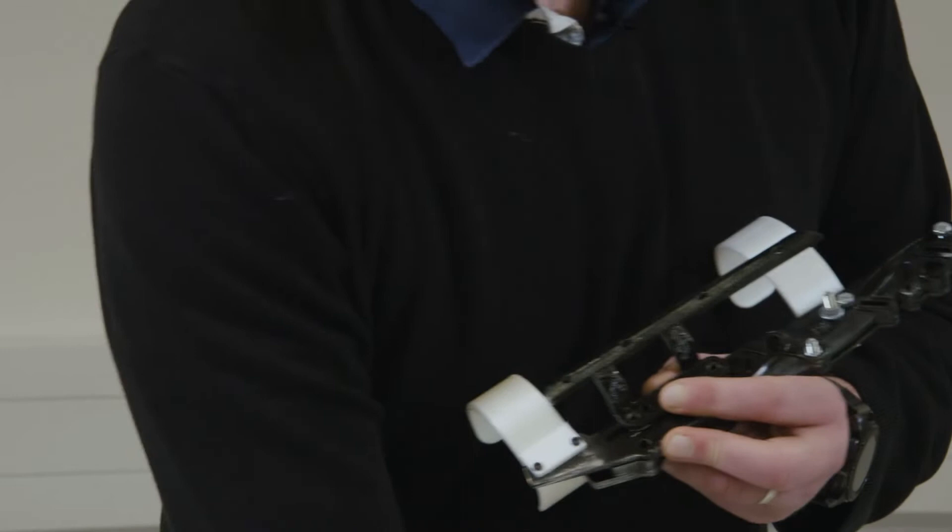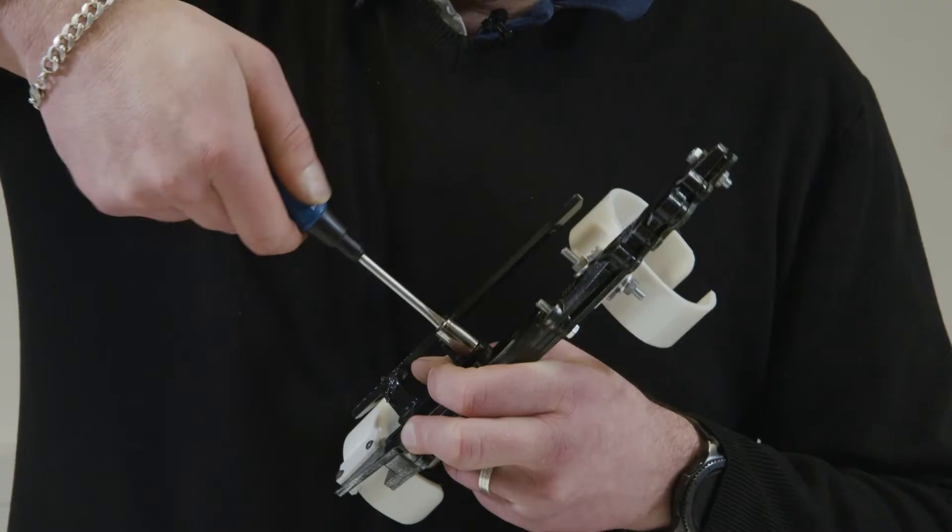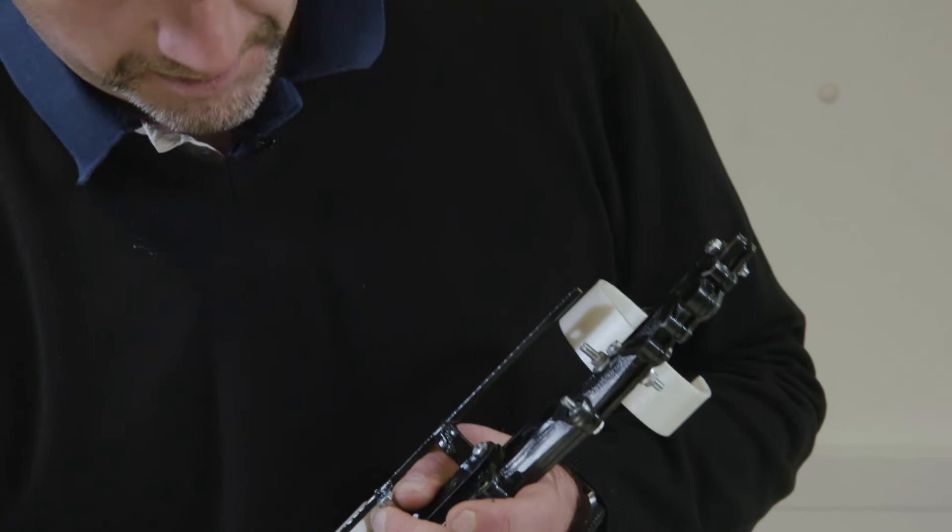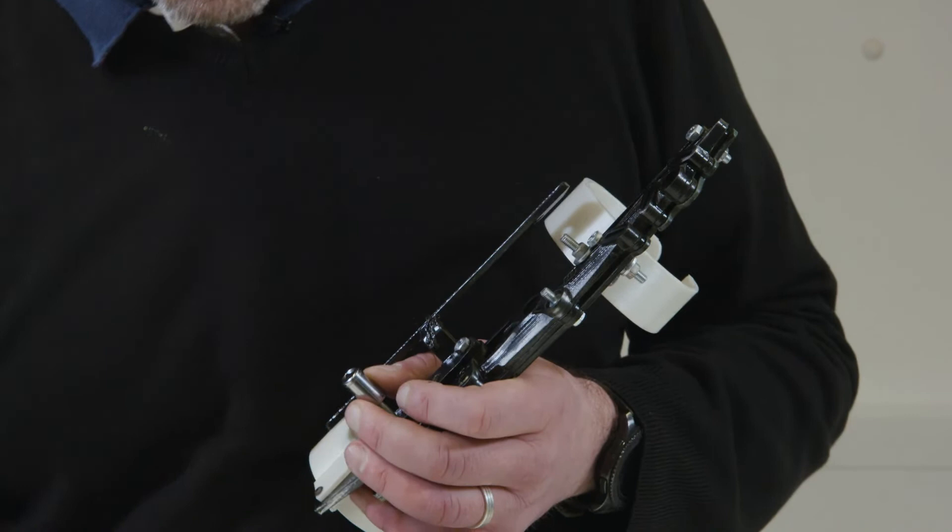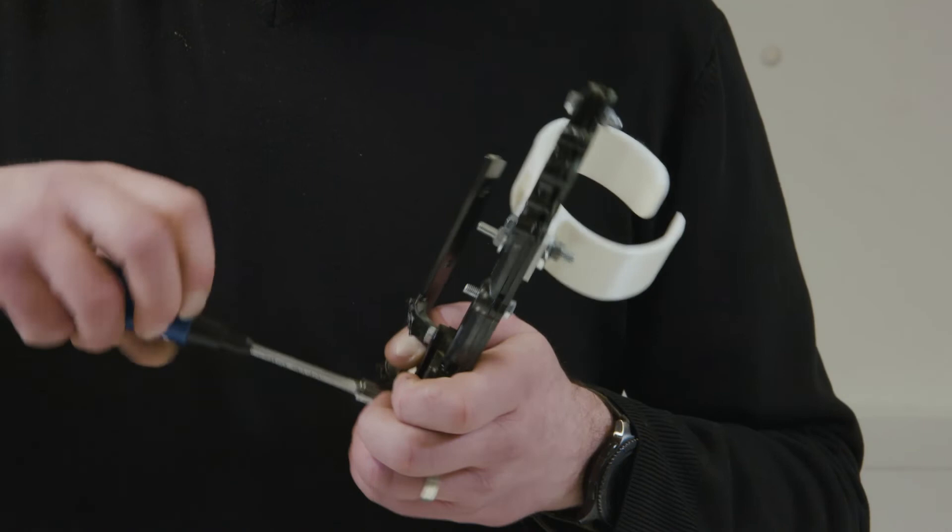So what I'll do is grab my bolt and I'm going to place my bolt into the hole. Another bolt. And what I'll do is now bolt to the back end here. Again I'm just going to use my trusty socket to make my life a bit easier. And you'll feel a little bit of tension. Don't go overboard. You don't need to go too insistent to get it super tight. What I'd say is just screw it until you feel it engaged. So you feel it resist a little bit.